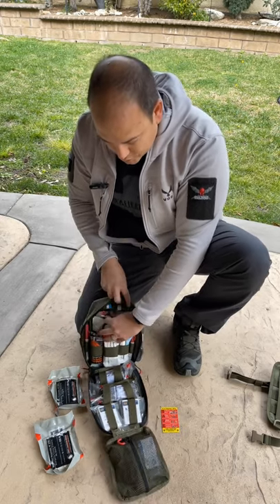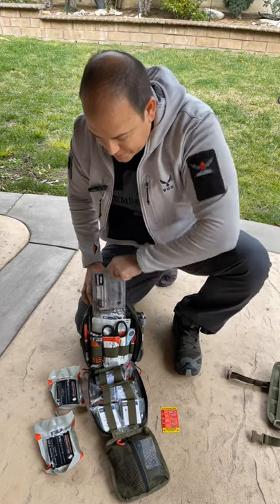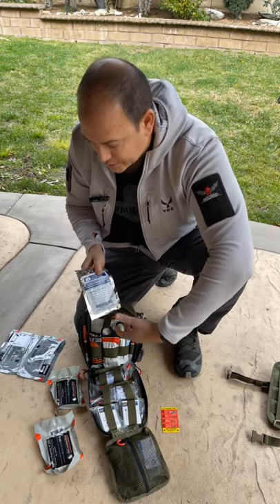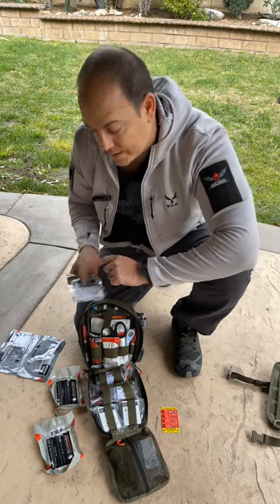Moving on, you'll see gloves on top. We also have two of the larger-size Vented chest seals. There's petroleum gauze as well, which helps create better adhesion between the fur and the gauze itself.